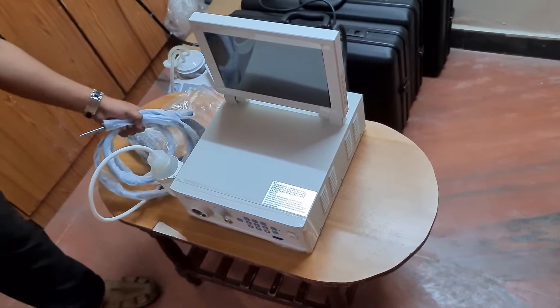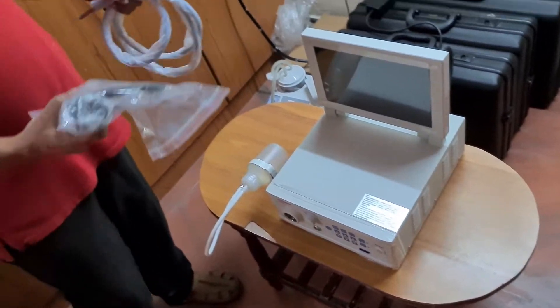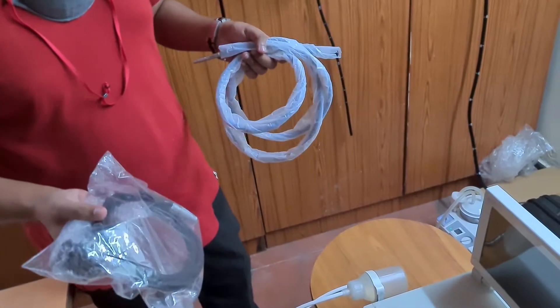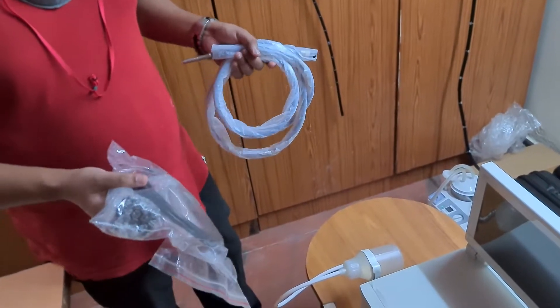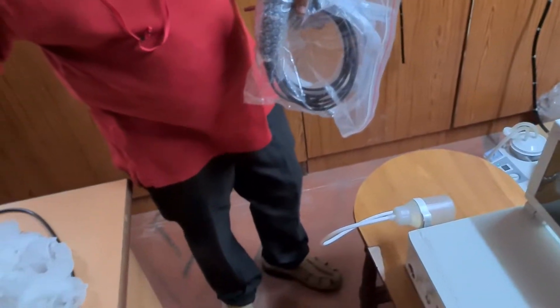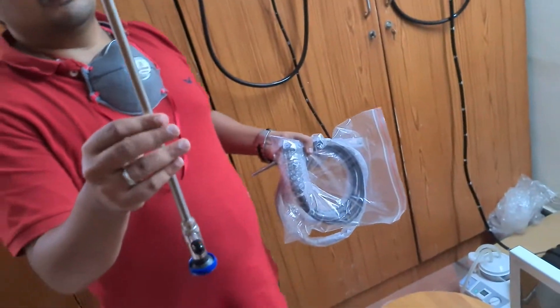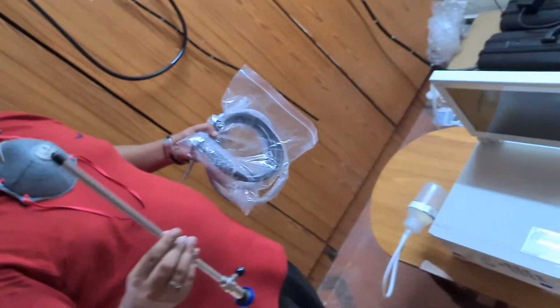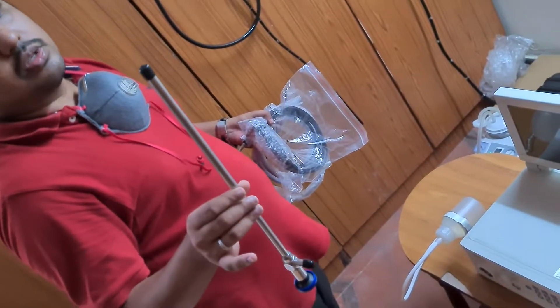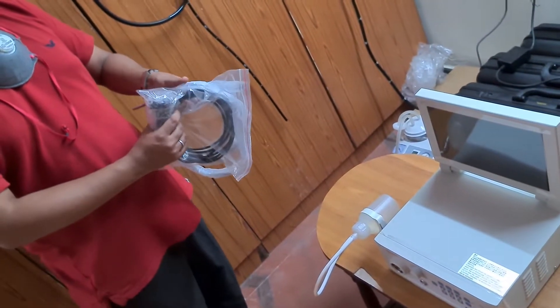In this final part of the video, we are going to show how to connect the 4K camera head and its light guide to any rigid scope or fiber optic scope — it can be a flexible scope as well. Right now I am going to first show you how to do it with a demo laparoscope — a zero degree laparoscope. For your understanding, this is not bundled with the package; you need to use your own scope. We are just going to show the functionality.